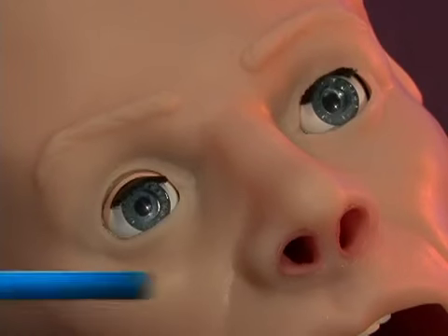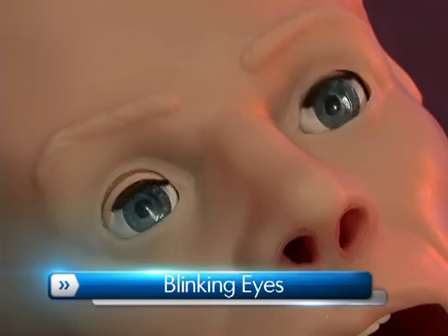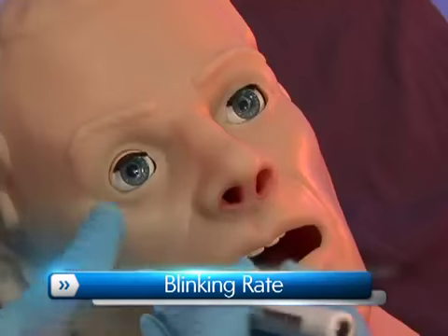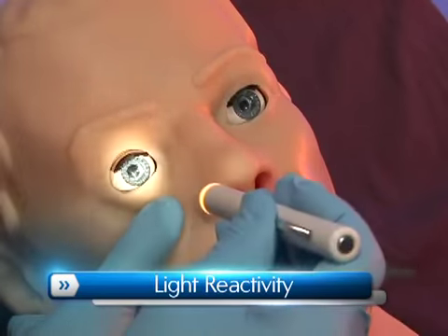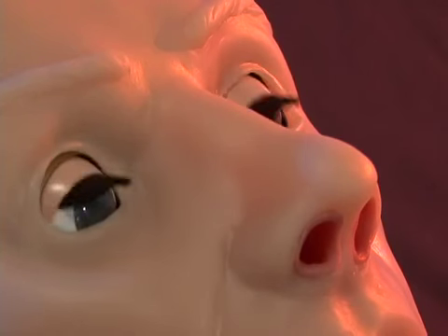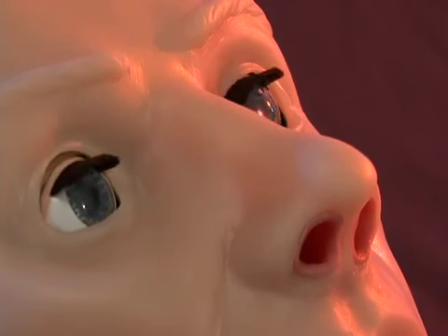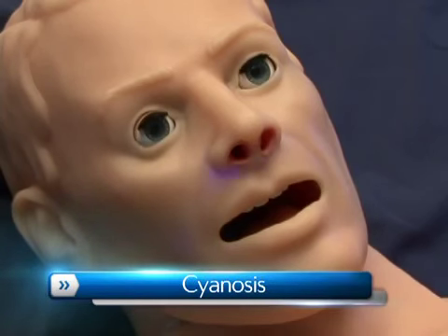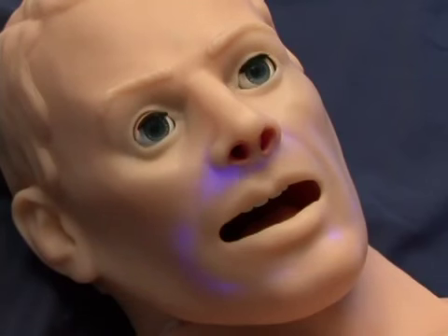State-of-the-art total control blinking eyes with photosensitive pupils. The dilatation state of the pupils, the blinking rate, and light reactivity are easily manipulated from the tablet PC, giving the user total control. Our new Cyanosis feature allows the user to control the pallor of HAL's skin when hypoxic events occur.